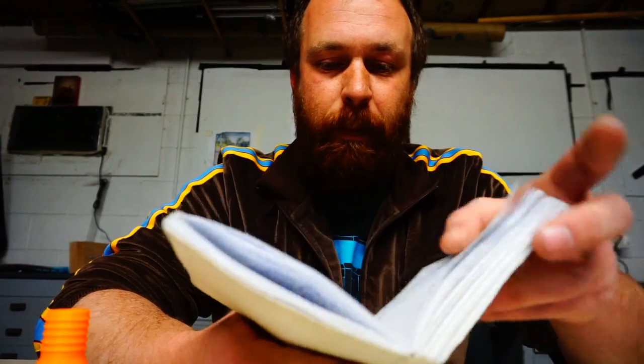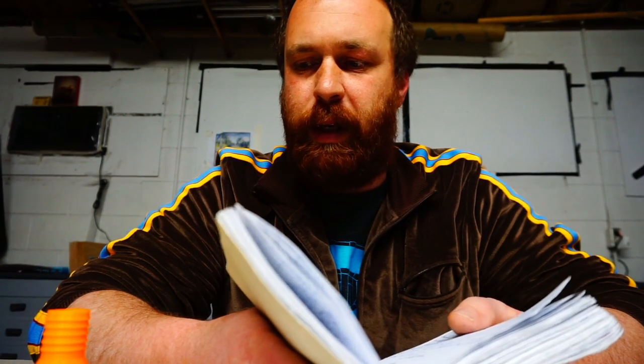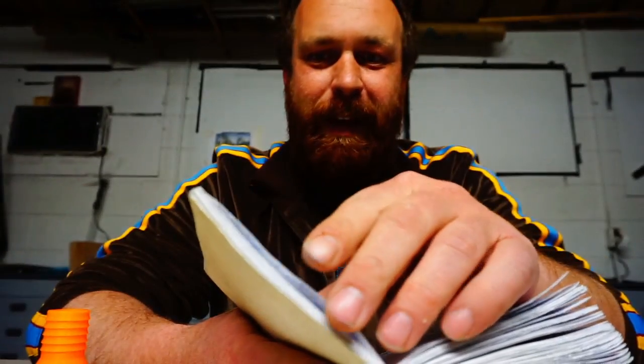I'm not a doctor. I'm not an engineer — I just play one on YouTube. These are not professional medical machines and they should not be used by anyone but a doctor, maybe not even a doctor. But if it comes to using subpar medical equipment or letting a patient die, maybe it makes sense to make some homemade ventilators out of soda bottles and fan motors and drills and things like that.